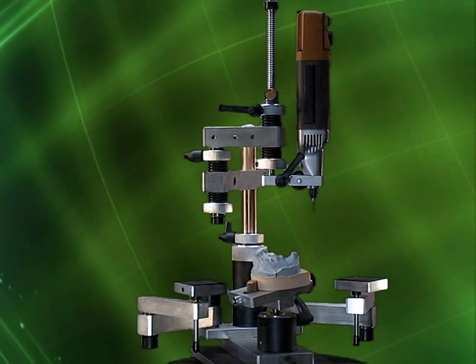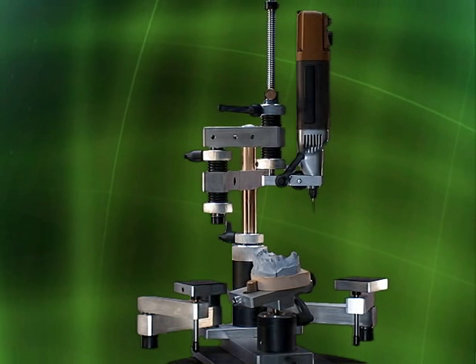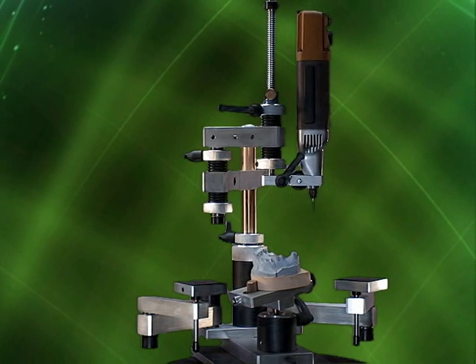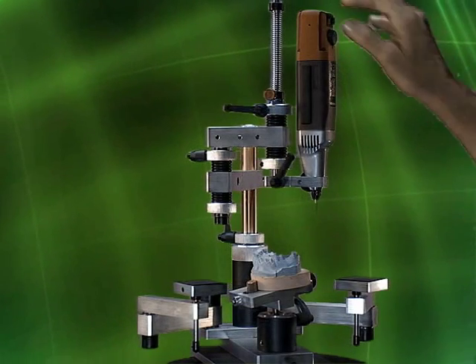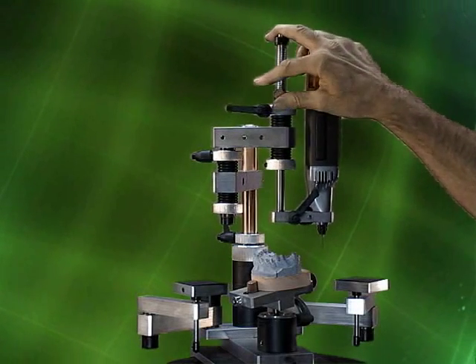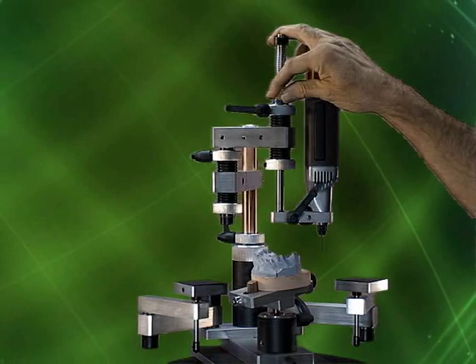As you can see, the motor is high over the model and would require a lot of downward pressure to bring it into the work area. If you don't require the ability of the motor to freely move up and down, you can lower the motor to the ideal height and lock it in place with a depth stop screw. And there are times when using this mode will be exactly what you want.